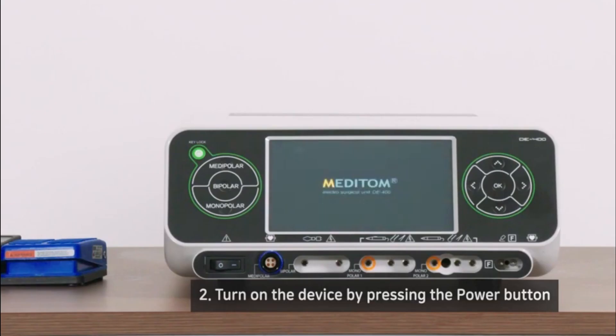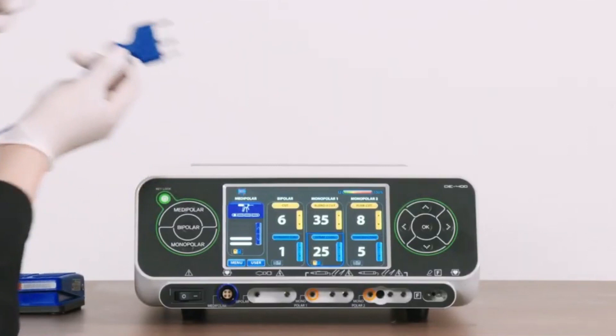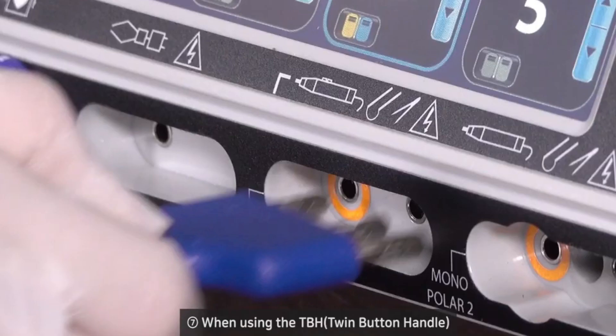Hello! Welcome to Biomedical Engineers TV. In this video, we will look into electrosurgical unit devices. Let's start the video by looking at where it all began.